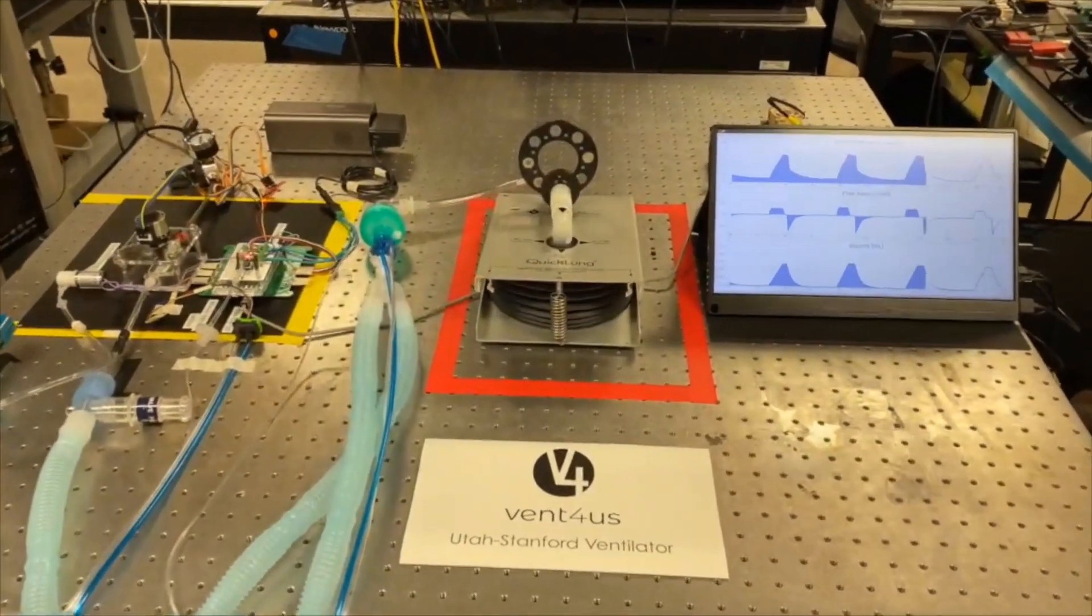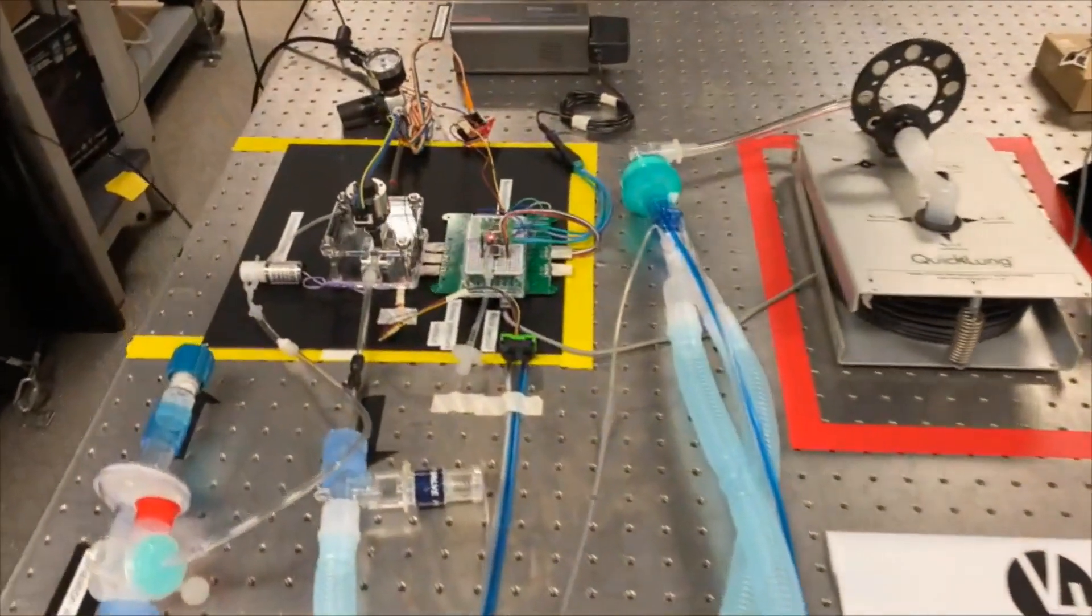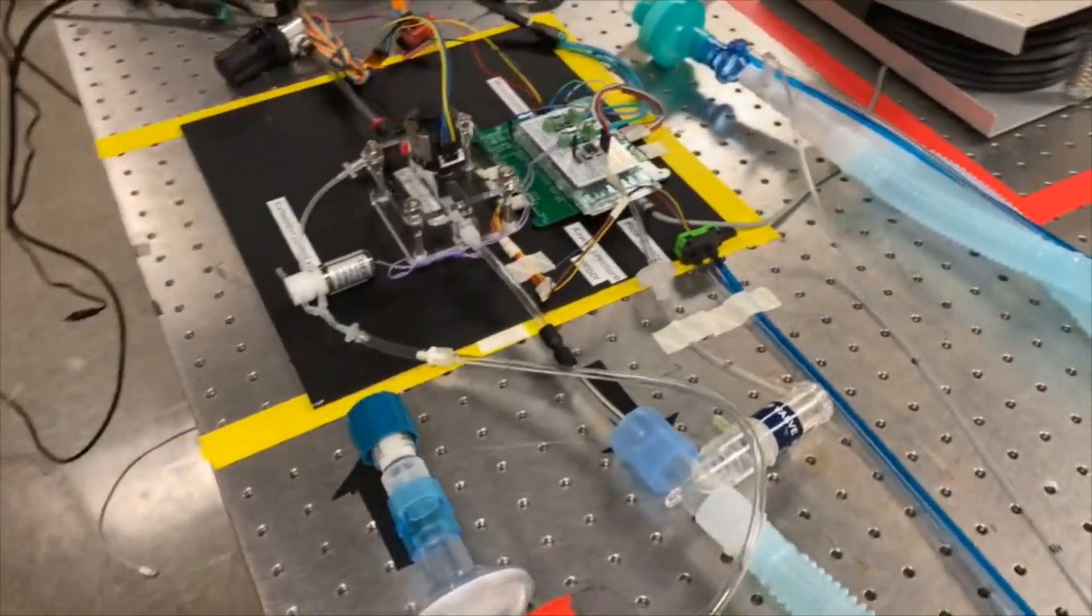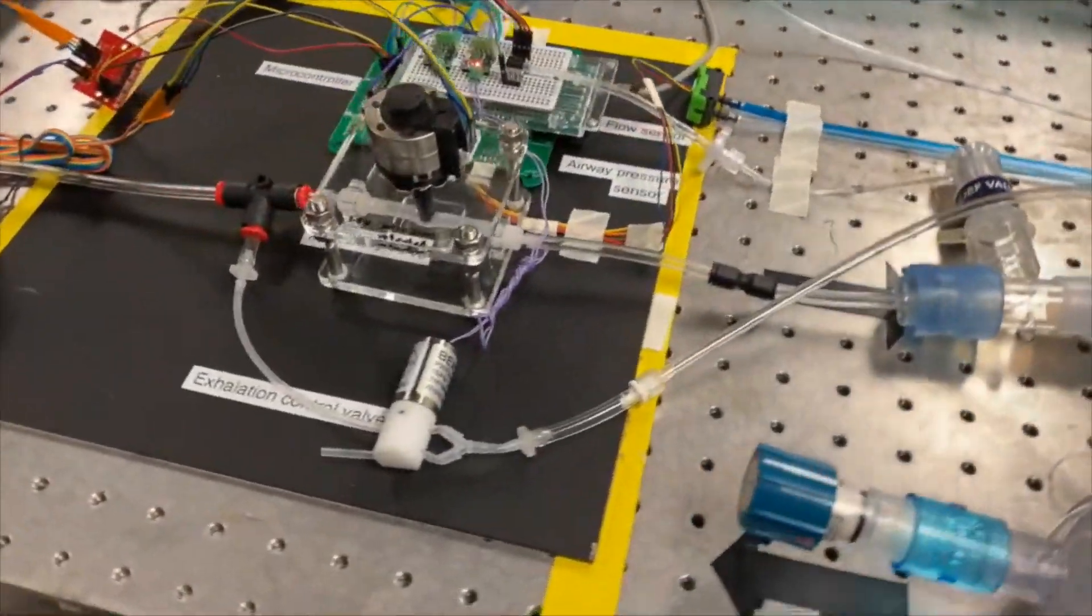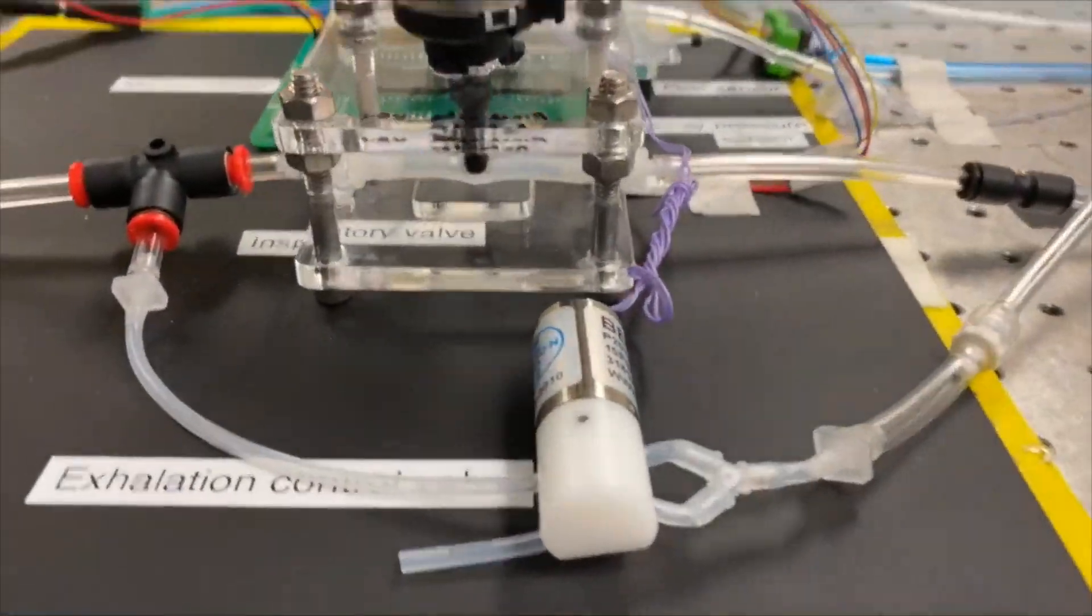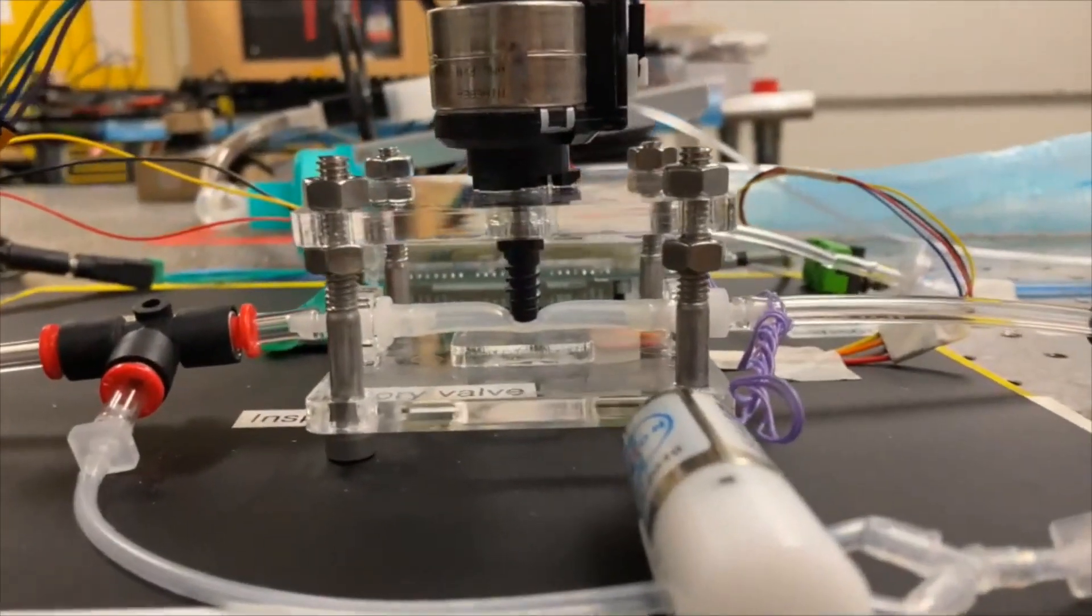When we met Manu Prakash and his team and combining our expertise with their long experience on frugal innovation, that was the ideal mix to not only create a ventilator that we know works and we know how to test, but also one that we can vet clinically immediately.